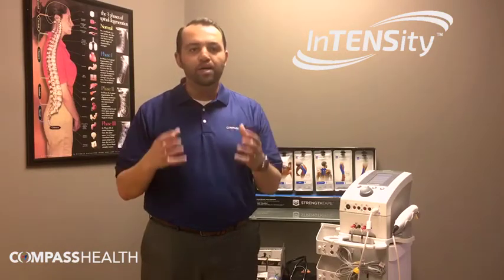RAS is designed for smooth, coordinated muscle contractions with functional movements to provide the best therapeutic outcomes. It's new and it can be found on our EX4 and CX4 machine.